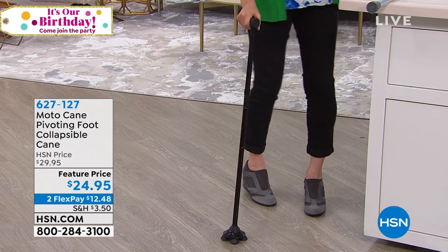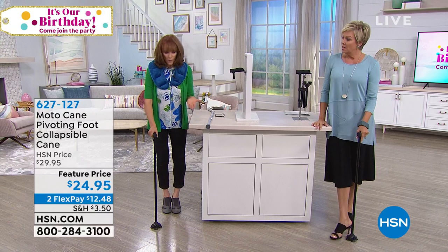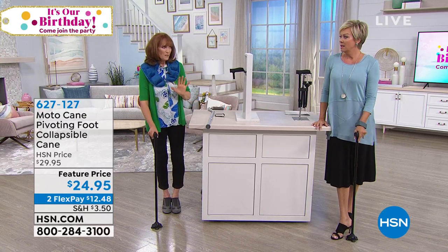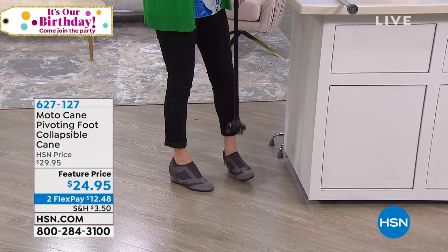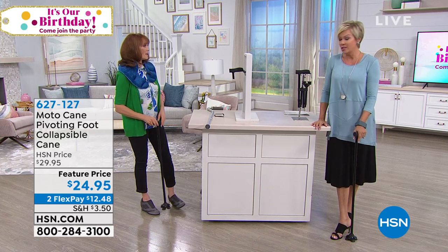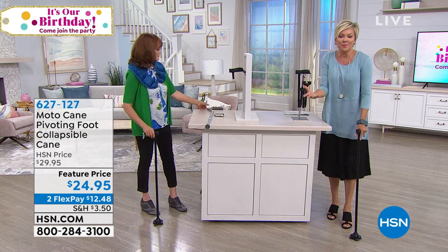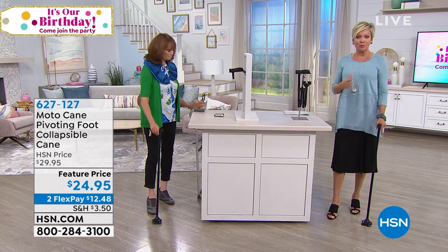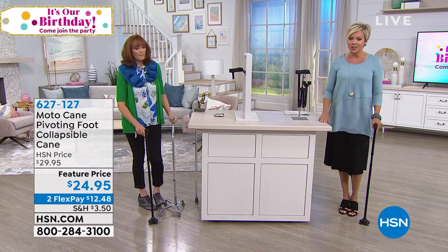That's a big concern as you get older, just had surgery, or grandma and grandpa want to come to the amusement park and enjoy everything with the family. It helps you feel stable. My son is 23 now, but when I had him I was on a cane for six weeks after a really difficult delivery. It doesn't necessarily mean you have to be in your upper years to feel unstable when you're out and about.